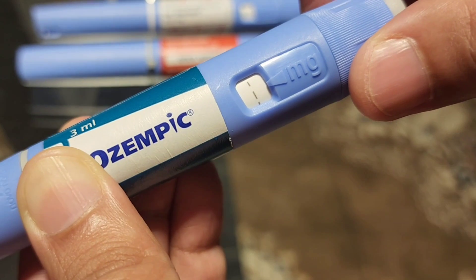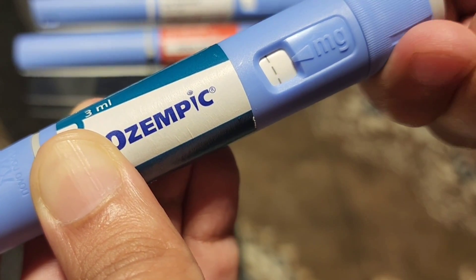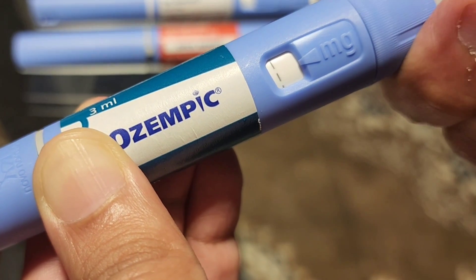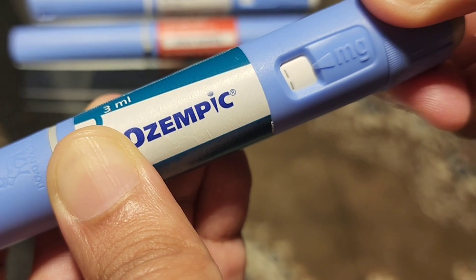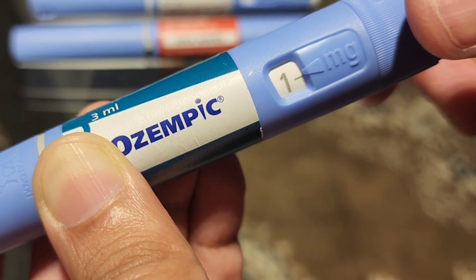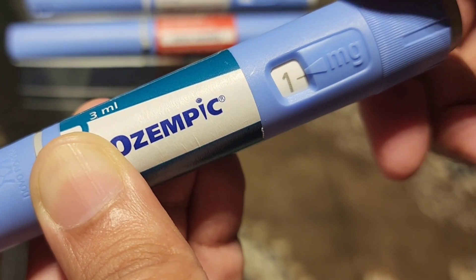If you continue counting it will reach 72 to give you the 1 milligram. 37, 38, 39, 40, 41, 42, 43, 44, 45, 46, 47, 48, 49, 50, 51, 52, 53, 54, 55, 56, 57, 58, 59, 60, 61, 62, 63, 64, 65, 66, 67, 68, 69, 70, 71, 72. So: 72 clicks means 1 milligram, 36 clicks means 0.5 milligrams, and 18 clicks means 0.25 milligrams.